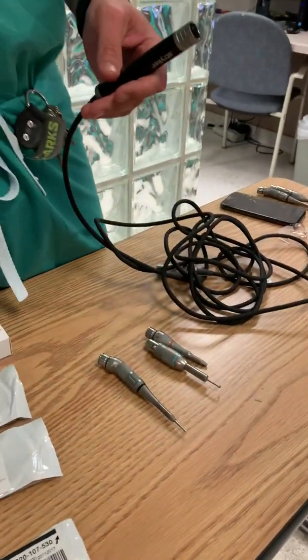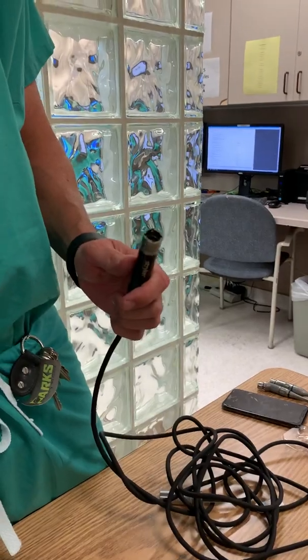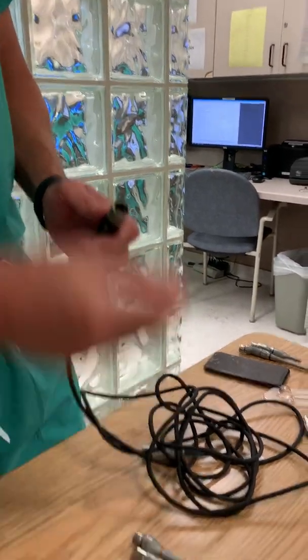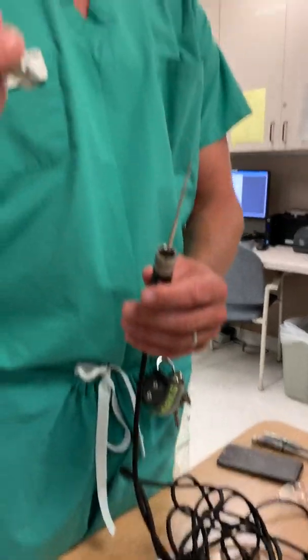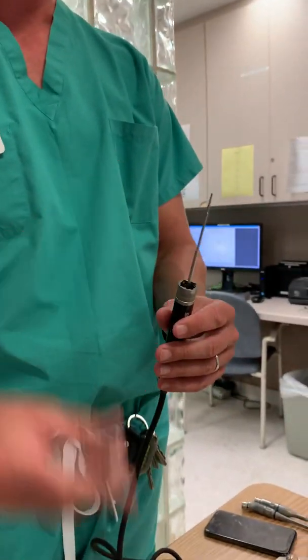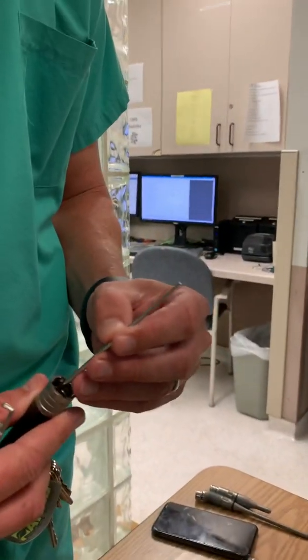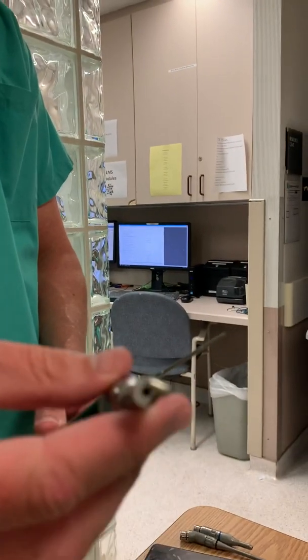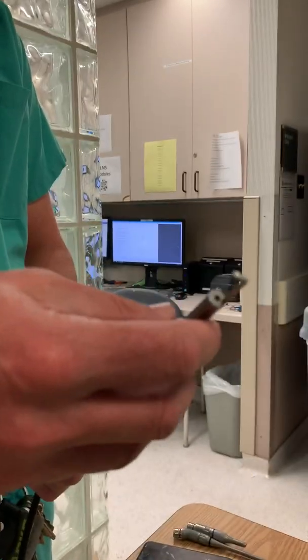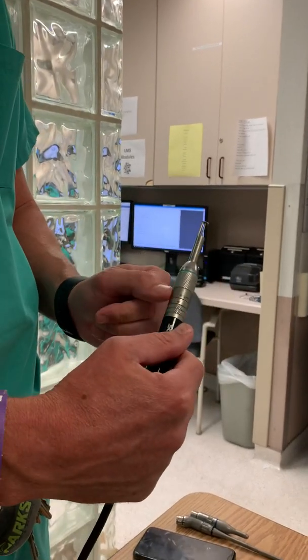The next thing you're going to need is to connect those burr holes. So this one — no rivets — doesn't go in anything else, but it does go in the black ones. This will load like this. This goes with this and this — remember, it's the blue. I usually try to load it in there first and then put it in there. You can preload it if you want — it means it won't fall out sometimes. It's black dot to black dot.